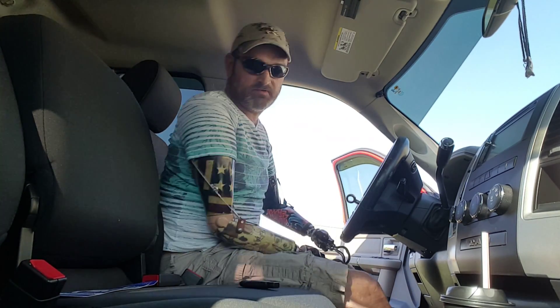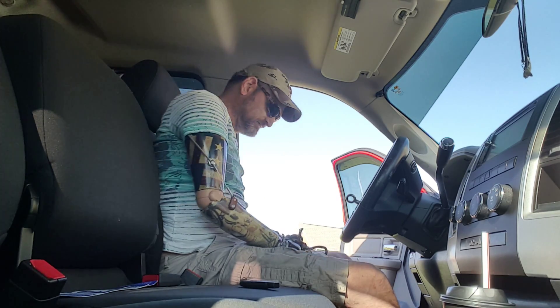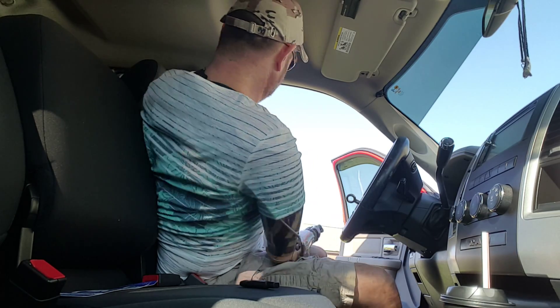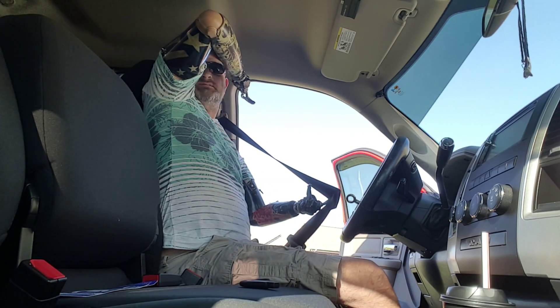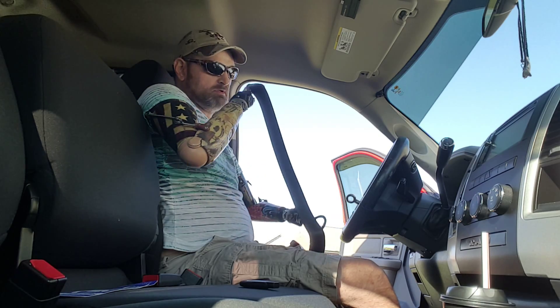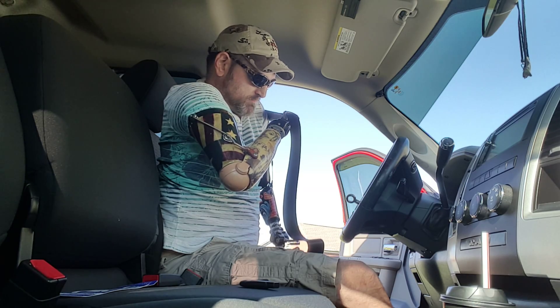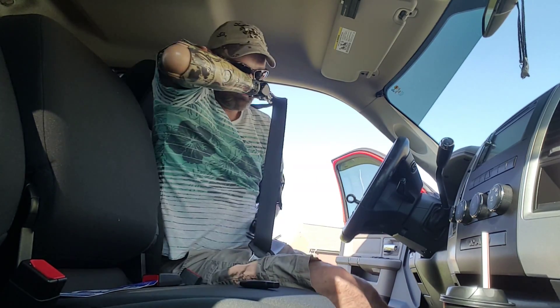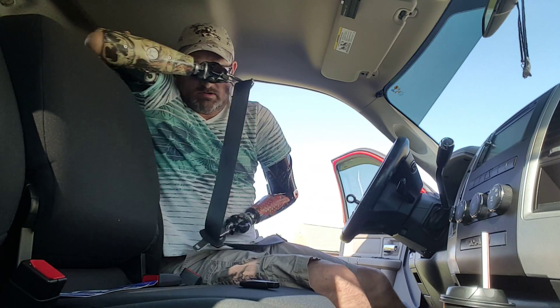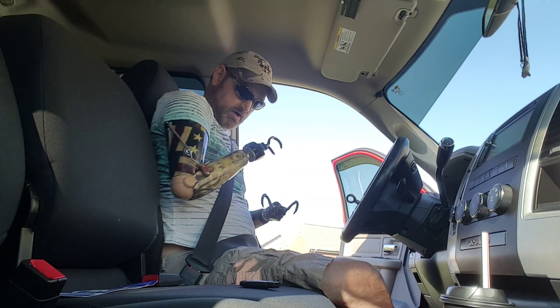Now I'm going to show you another way. I learn something almost every day — it trips me out, it's awesome learning things. Anyway, another way: I'll reach around here and grab it with the left arm, pull it around, then bend this right arm up and grab the strap with the right hook — holding on to it instead of using my mouth. Sometimes they fall out, that's just the way it is. Put it in the same way — bam, good to go.